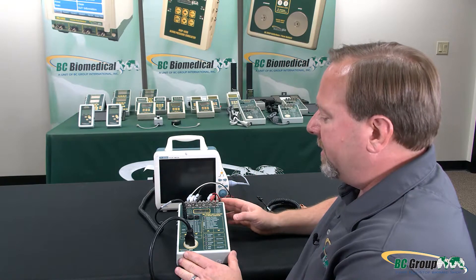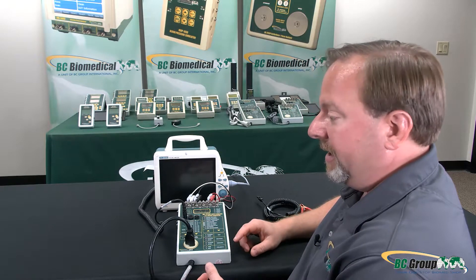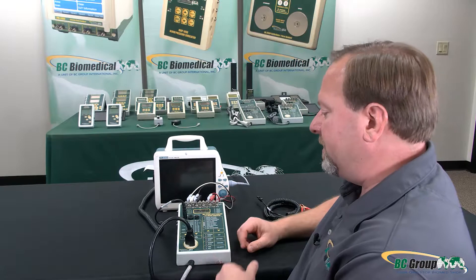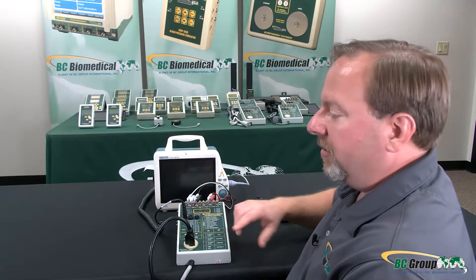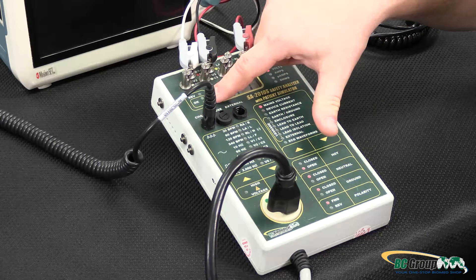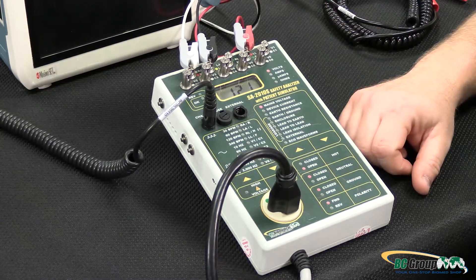In this test we'll be doing some single fault conditions — such as what happens if the outlet is wired in reverse, if there's an open hot, an open neutral, or an open ground. For those tests to be valid we have to make sure that the receptacle we're plugged into is wired correctly. We have our two OK indicators here, which tells me everything is ready and good to go.